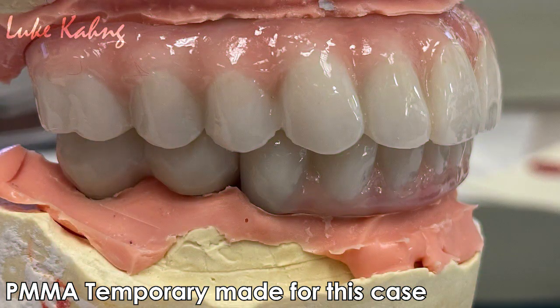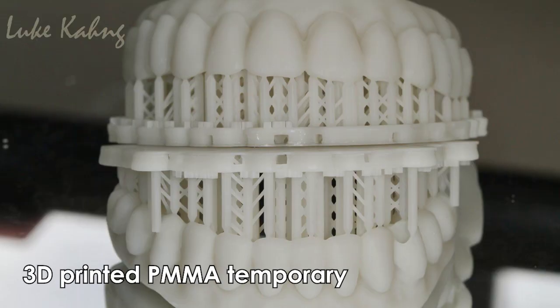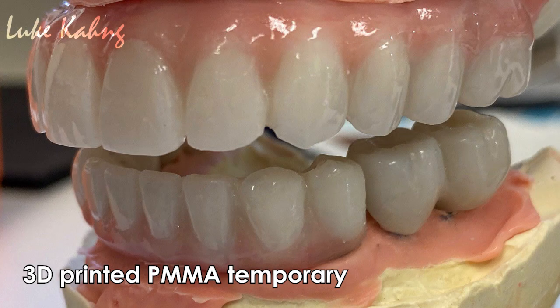This case is a nice case. We had a little bit of miscommunication between the dentist and me. The dentist expected fine final restorations from their wax-up. But we had to send out a PMMA — meaning the temporary — because we were trying to improve it. Sometimes dentists get scared and say, 'Just follow my wax-up,' which caused a little miscommunication. Anyway, we made a PMMA after we improved it from the wax-up and then sent it out to the patients.